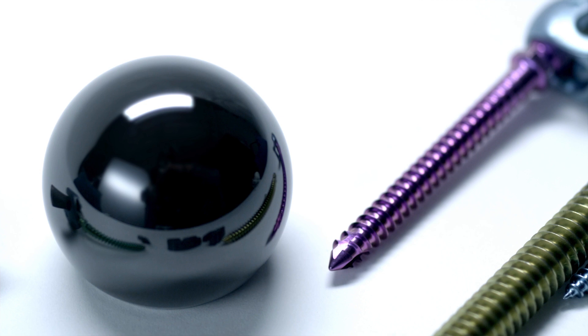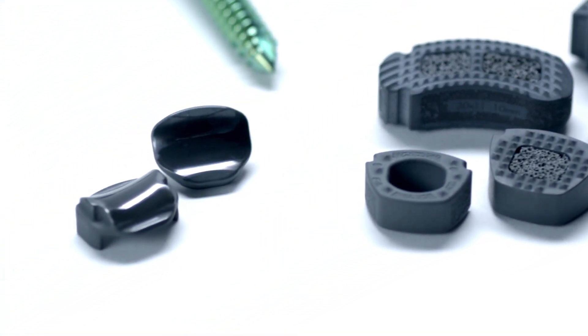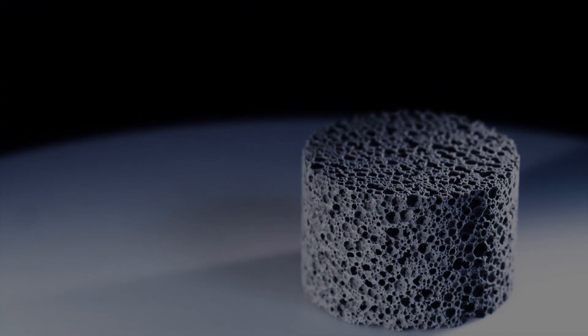Polished microcomposite ceramic with its diamond-like strength and appearance clearly has the potential to revolutionize the total joint replacement market. And their porous cancellous-structured ceramic is ideally suited for interbody fusions as well as hip, knee and total disc replacements.